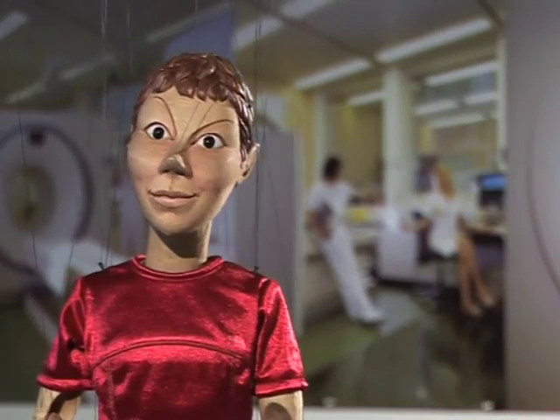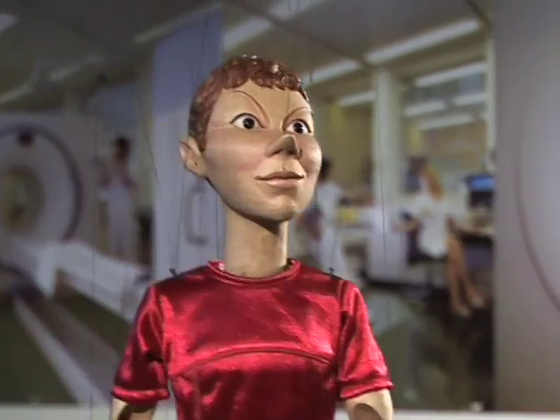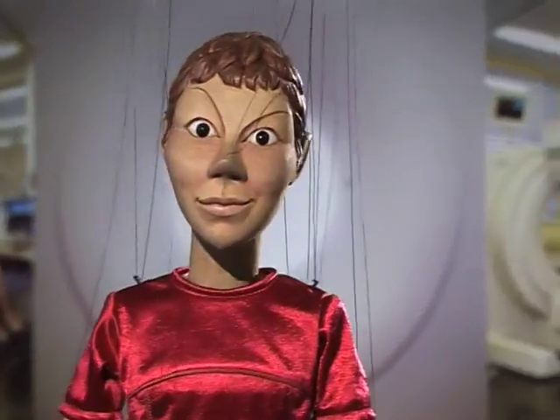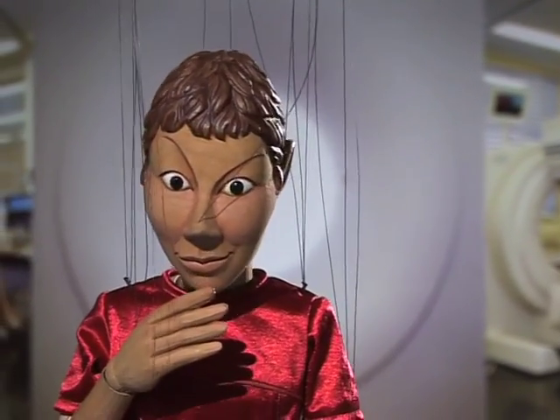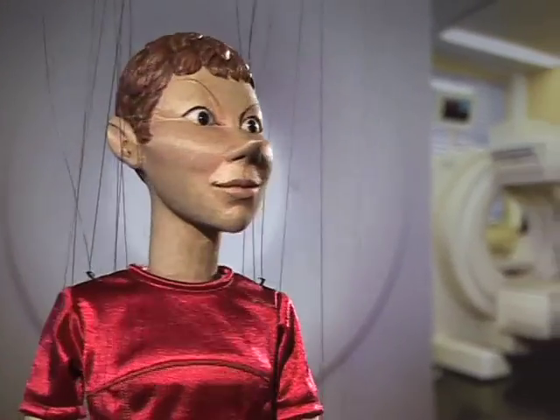Hi! Today I'm going to explain the diagnostic ultrasonography procedure. I forgot to introduce myself. I'm Paprika. I'll be your guide for the next few minutes.